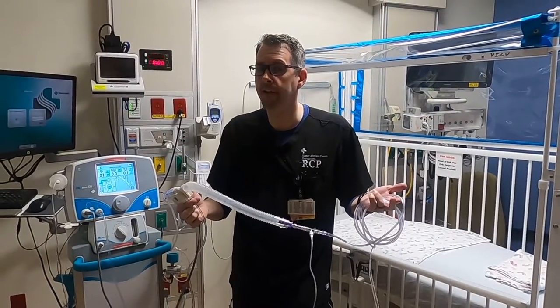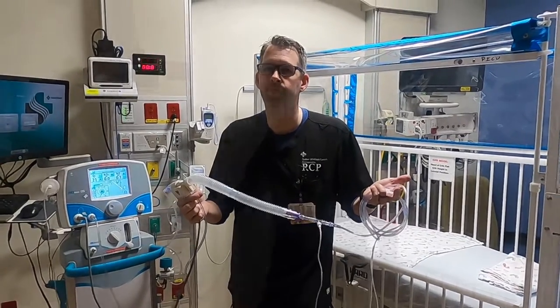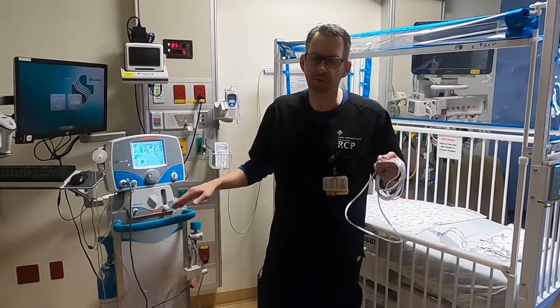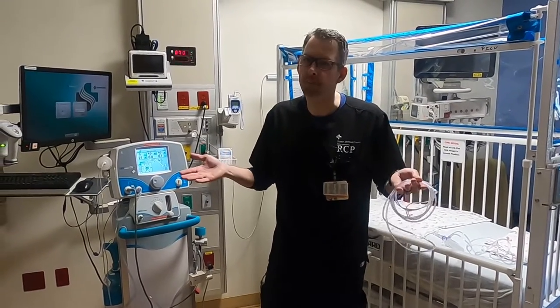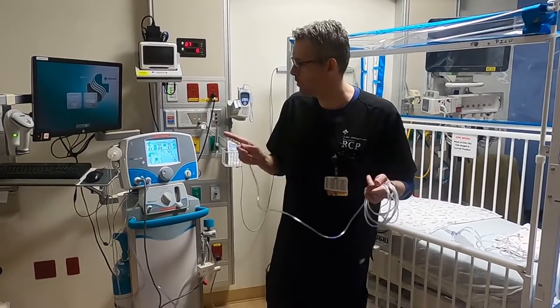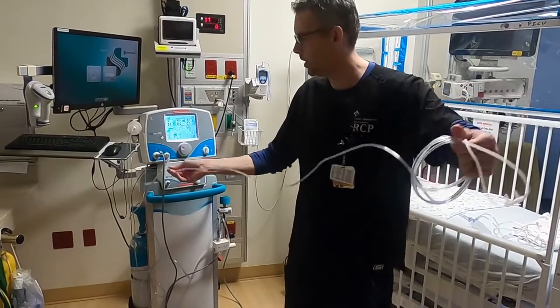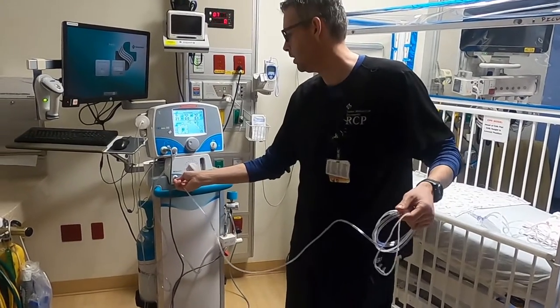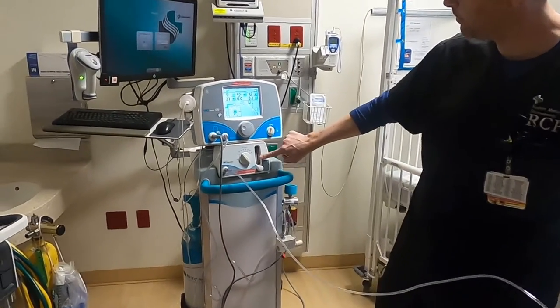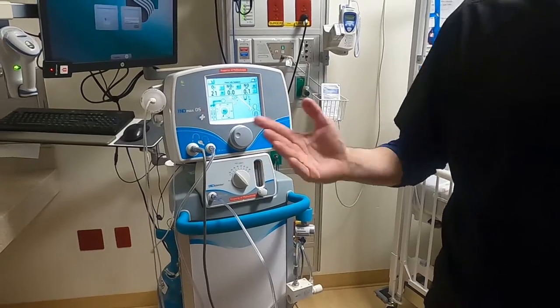Minimum flow for nasal cannula with nitric is two liters per minute. For those who work in the cath lab, sometimes they'll do nitric challenges on patients for a short time — 15, 20, maybe 30 minutes. For those situations, you can use the blender system by connecting your nasal cannula or mask here, turning your flow to whatever you'd like, and setting your parts per million wherever the doctor wants. Then they'll do the testing from there.